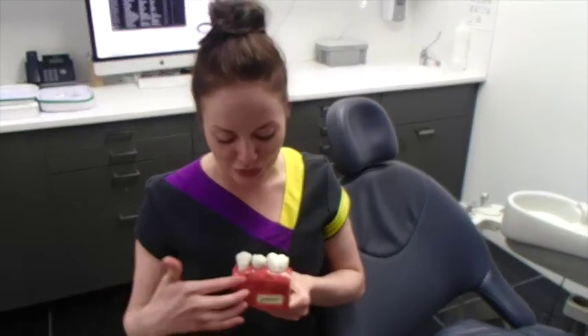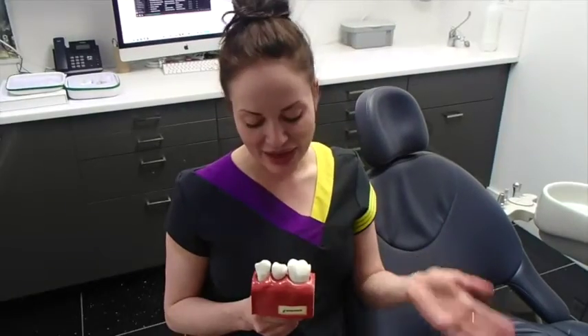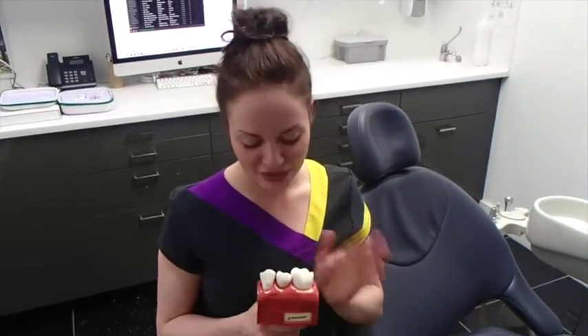The implant screw is able to retain bone, so you're able to retain structure and restore it with a tooth. This is solid, and like teeth, if these are looked after they will last you a very, very long time.